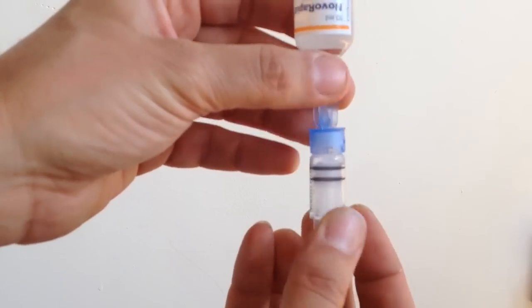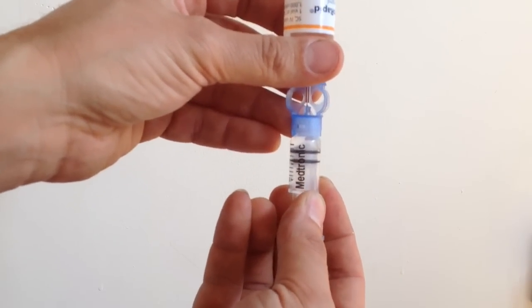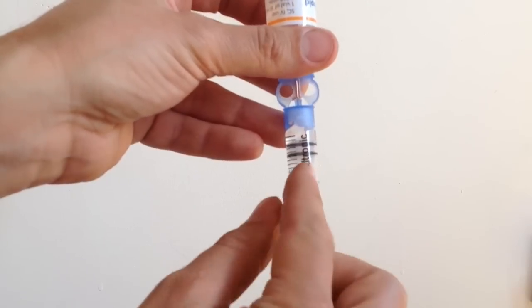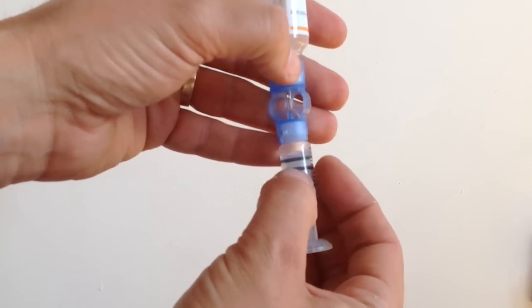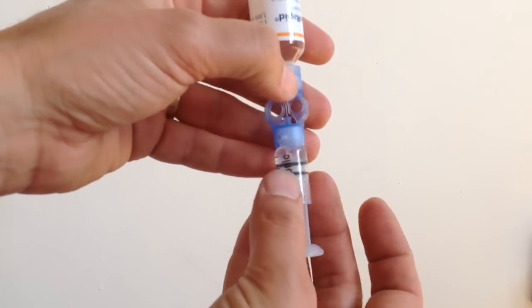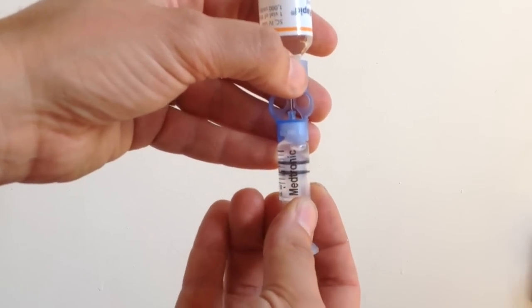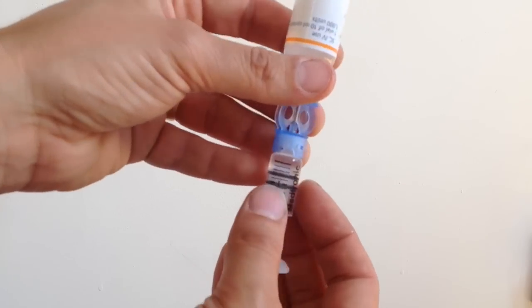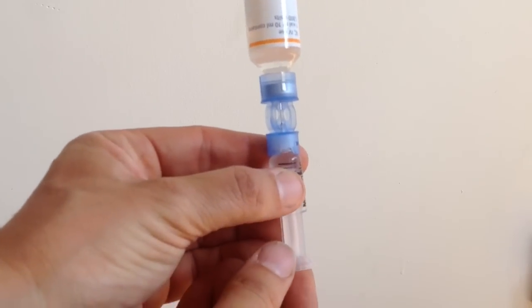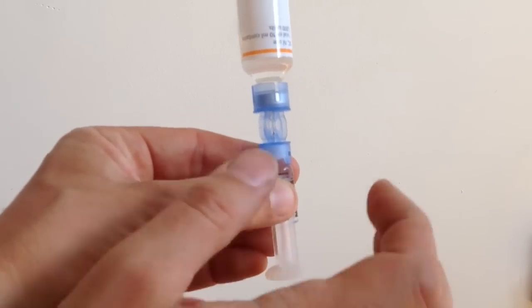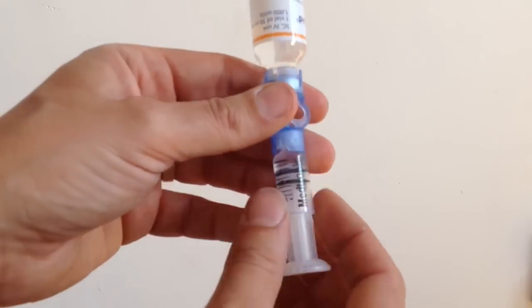And as I start drawing it up, I can see that there's a fairly fat bubble there. It doesn't look like there's much else around the bottom, that's pretty good news. So, once that is there, I'm just going to move that towards the top there, so it's near the insert and needle, and just push it back through, and get that air up into the vial.